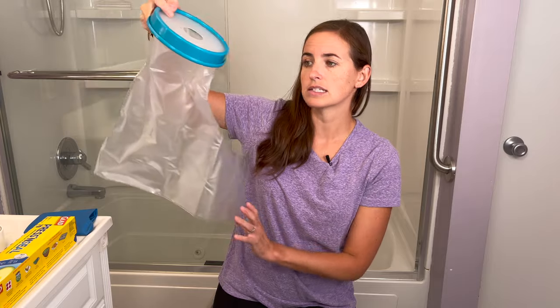It was really important with this type of cast that we guide the water away from it — having her bring her hair to the side and using the handheld shower head, really avoiding spraying or submerging that area. Once she was in a solid cast following surgery, it was far more protective, and after a few days she was starting to be more comfortable. But those first few days, we used the next cast cover.